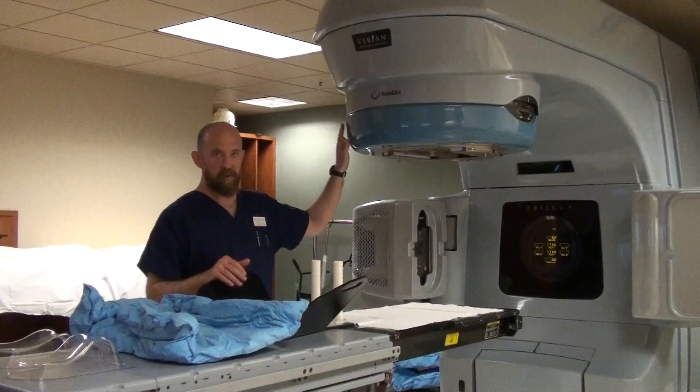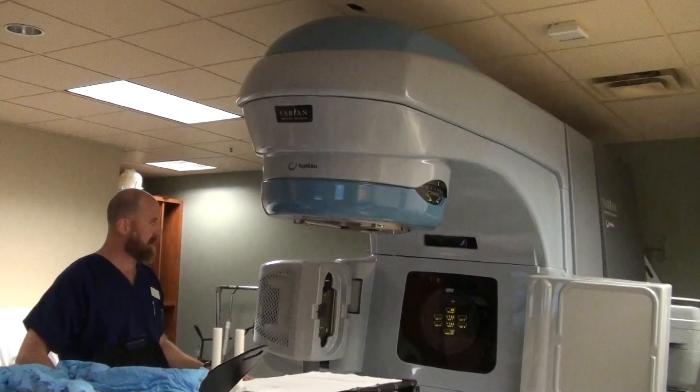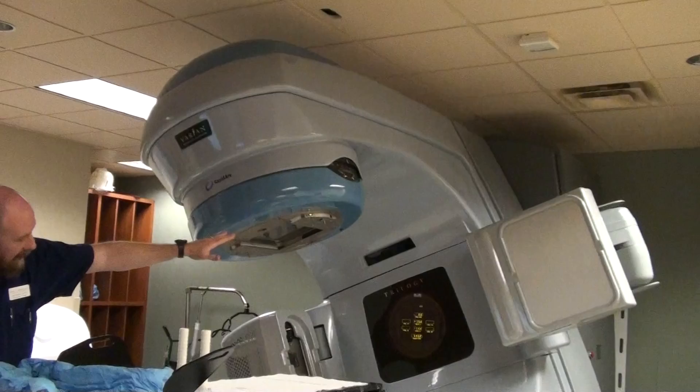We're going to go over all of the bits and pieces of our equipment. This, as we spoke about, is the gantry. The gantry rotates clockwise and counter-clockwise. The gantry itself is hooked to the drive stand or gantry stand, which is behind the gantry and holds the whole mechanism up.